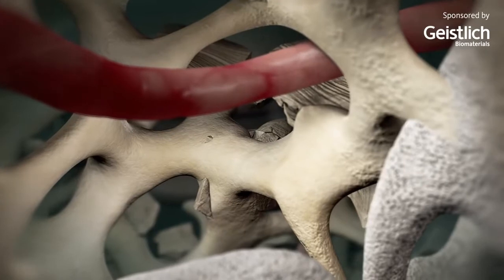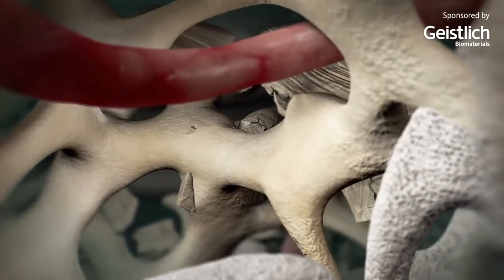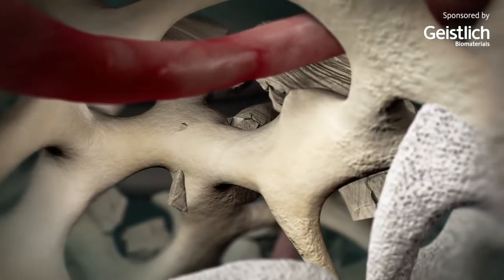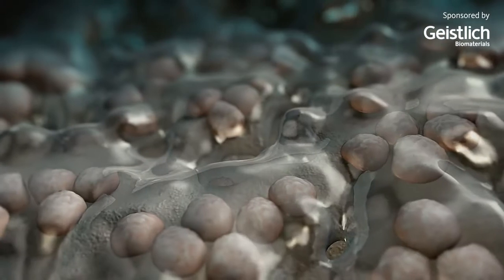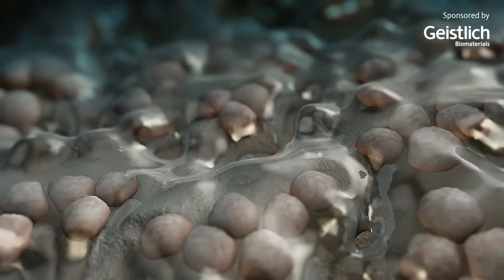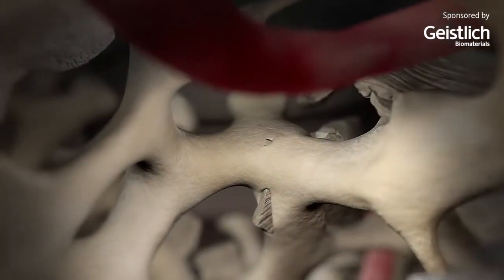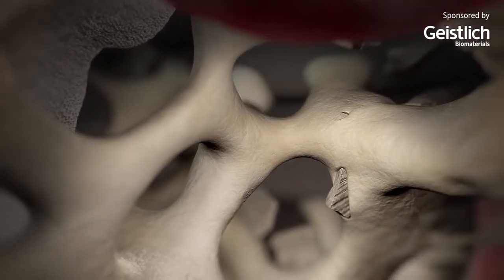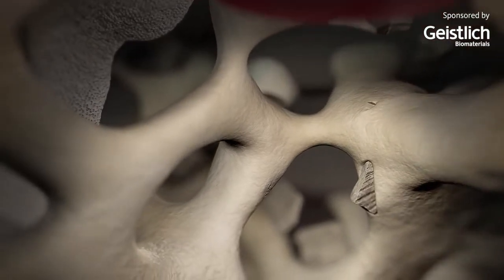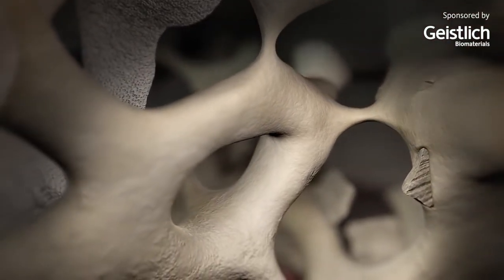At this phase, the collagen membrane is still present and delineates the buccal aspect of the defect. After having fulfilled its role as a barrier, the collagen membrane allows vascularization of the grafted site from the periosteum.